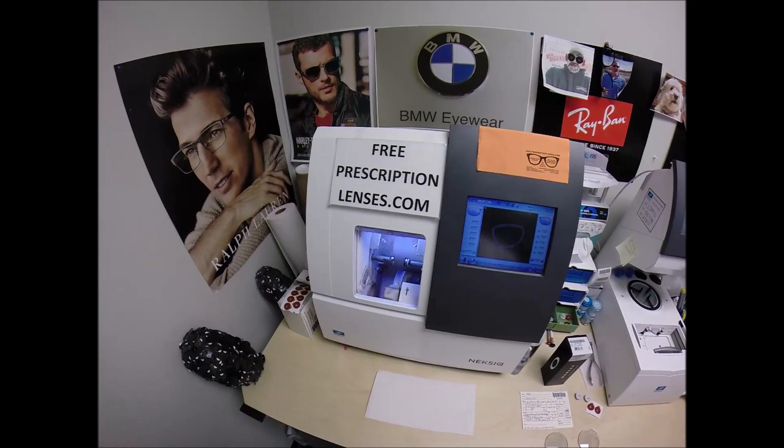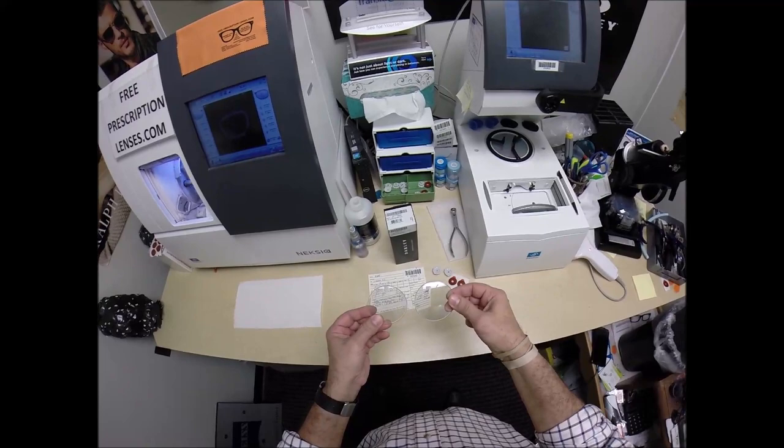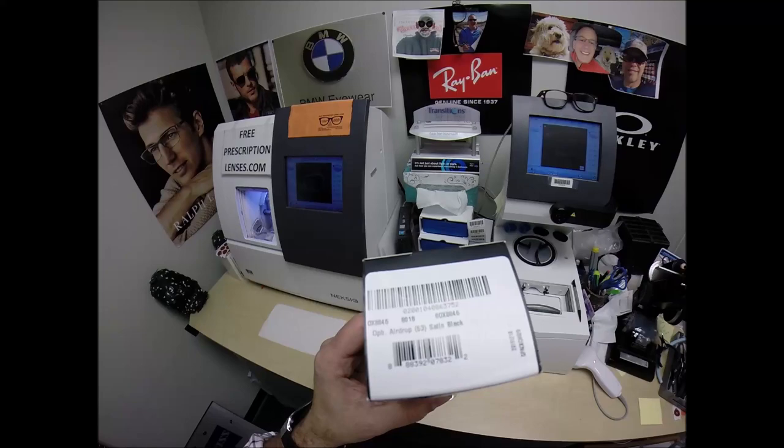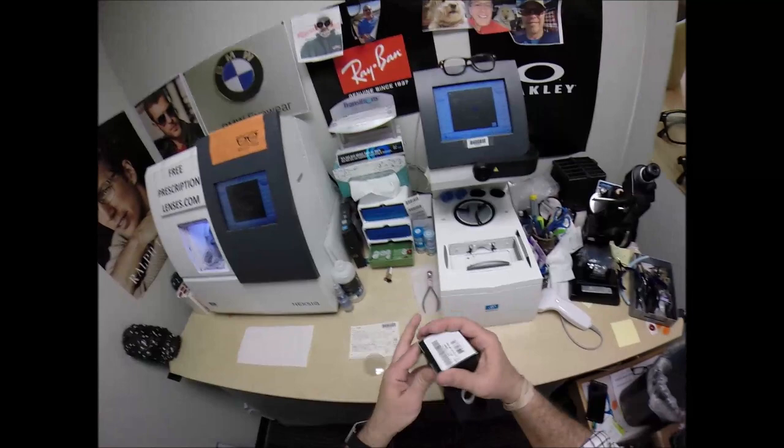Matt in Clemson, South Carolina. See more better with freeprescriptionlenses.com and today I'm going to show you how I cut the transitions extra active with the silver flash mirror for your Oakley 8046 which is the airdrop in the 53 eye size color 01 satin black.